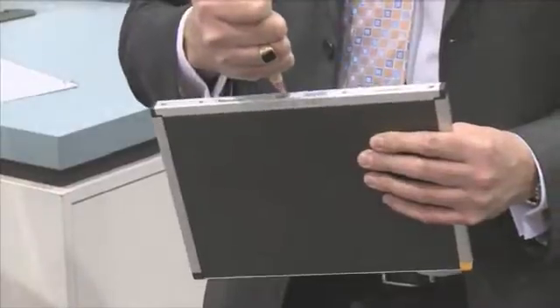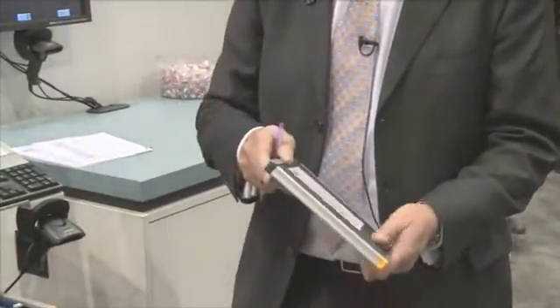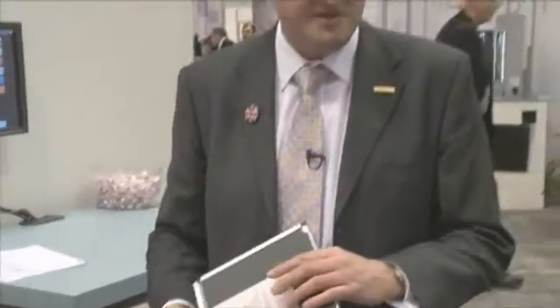The advantage of rigid plates is that the plates do not bend in the whole imaging process. If I show you a screen inside, you'll see the plate is mounted on a rigid support. This is different from all the other manufacturers' CR systems. The other manufacturers have a flexible CR phosphor which has to bend and go around rollers and it cracks. It gets physically touched during the whole process. With our system, the plate is taken out of the cassette, goes straight down inside the CR reader and is read without touching the surface of the screen whatsoever. That's the major benefit.